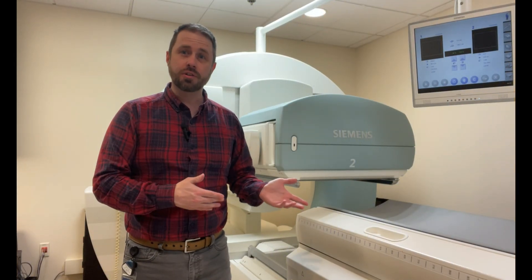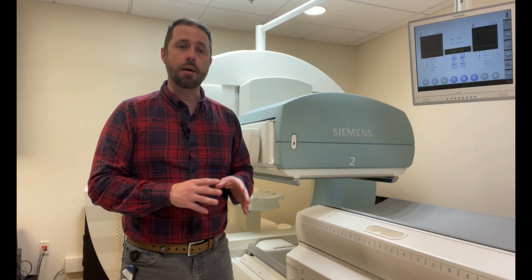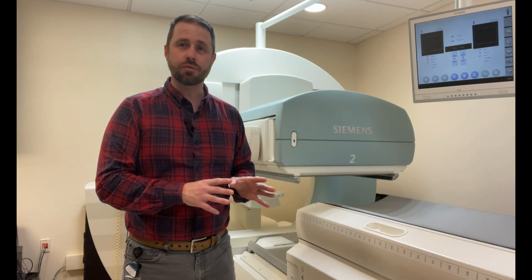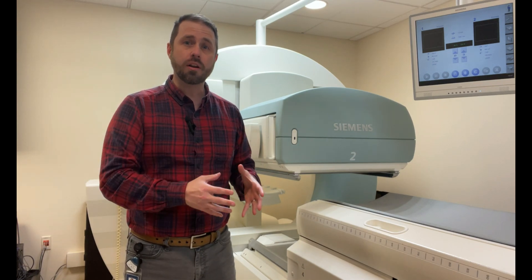And there you have it — that's your extrinsic flood QC, extrinsic uniformity. Again, this is on a Siemens Symbia, so you can do auto QC with the sources that are in the table. But this was a video just to show you how to do a manual QC, and you can use this same technique regardless of what vendor or manufacturer system you're on, whether you're on a Philips system, a GE, or anything else. Basically, put your sheet source on the detector, acquire your uniform image, and then run it through a processing algorithm to get quantitative results. Look at the image not only quantitatively, but also qualitatively to see if it passes both of those.